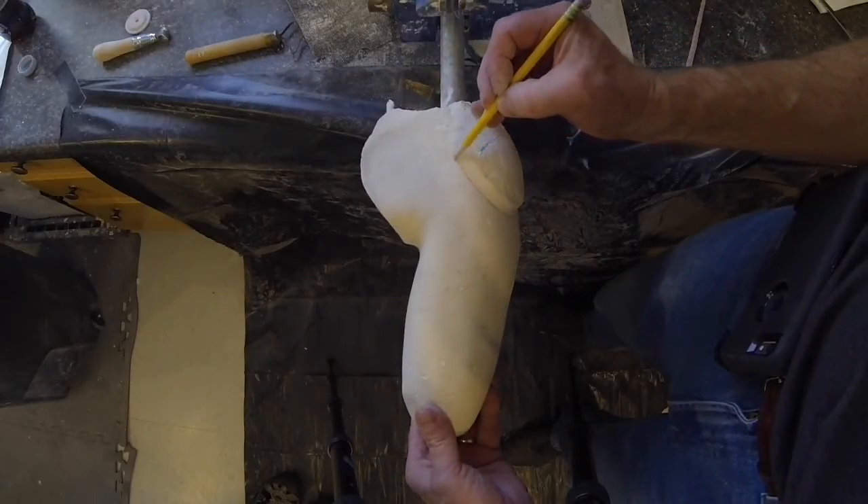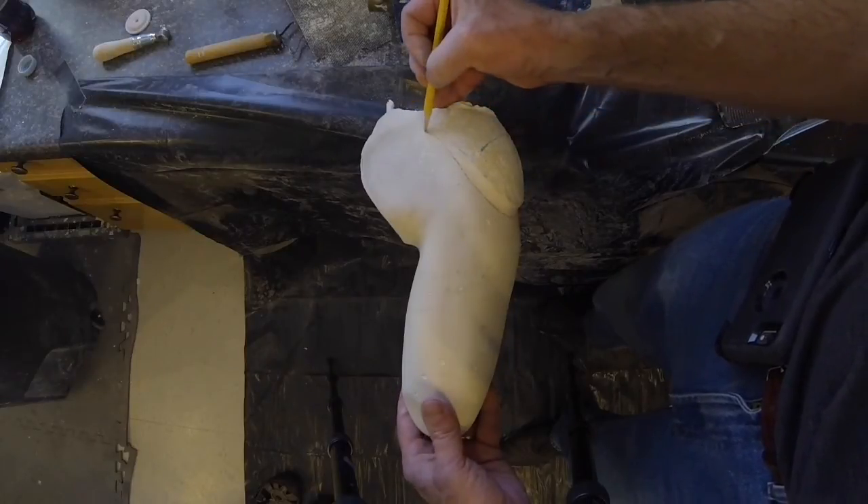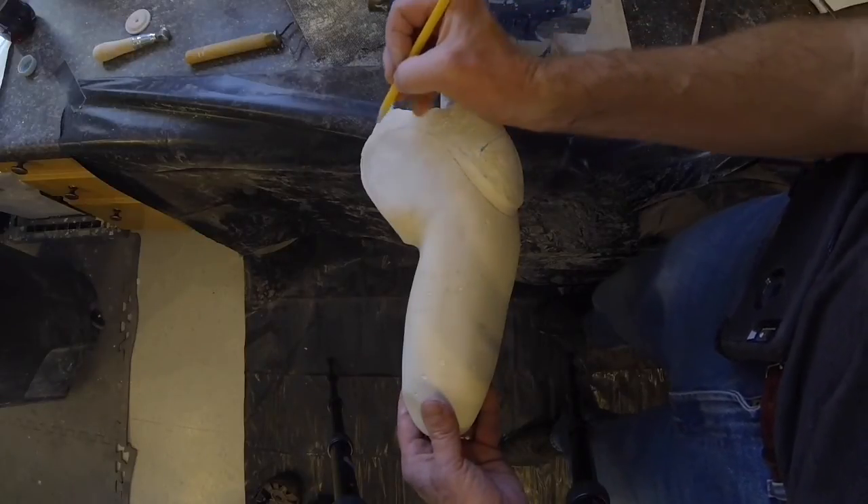Note there will be no flaring of the proximal lateral wall away from the body. This will provide a smooth contour underneath clothing.